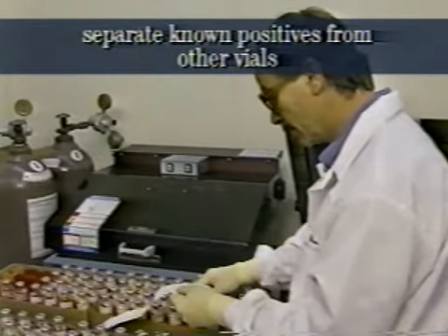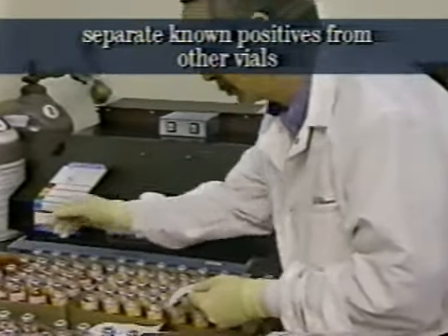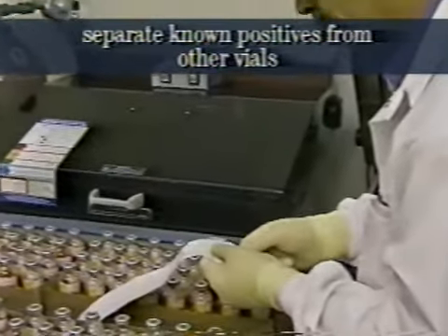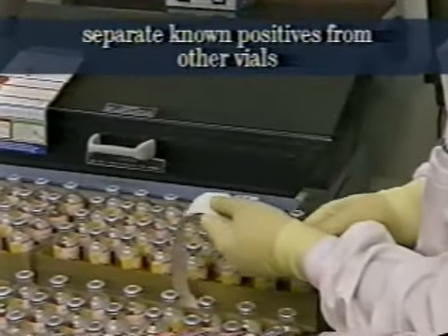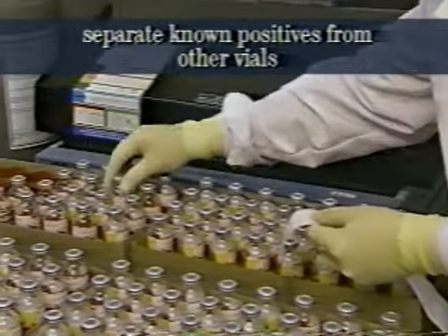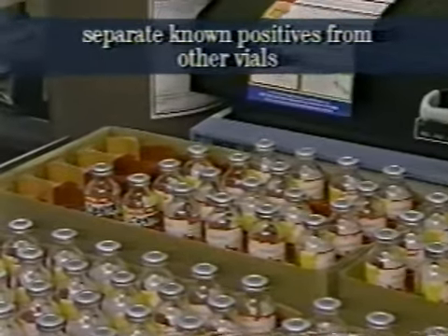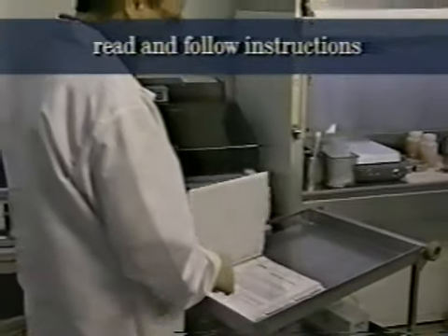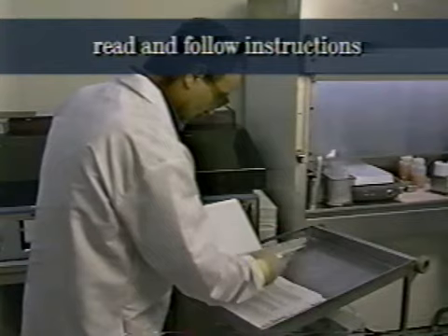Separate cultures that you know or suspect to be positive, such as cultures that have already shown growth, cultures of smear-positive specimens, and cultures of proficiency testing samples from cultures of unknown status. Place these positive cultures at the end of the run. Always read and follow the instructions provided by the manufacturer. They were written to help you.